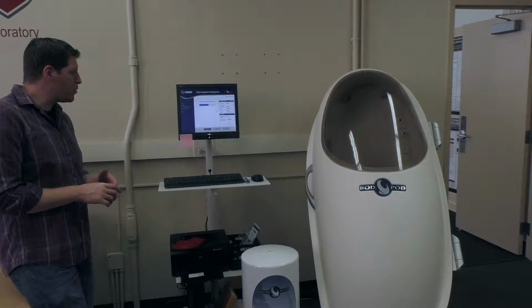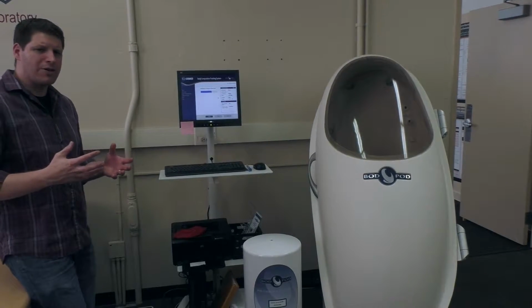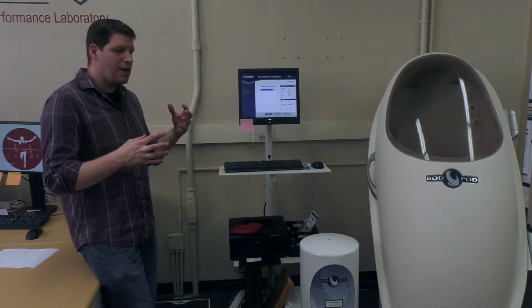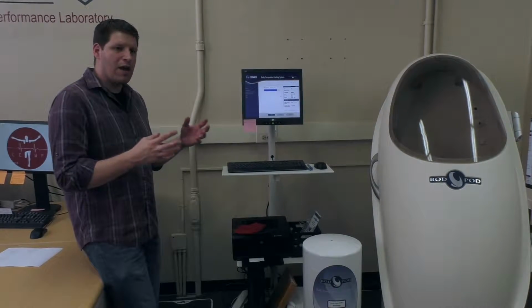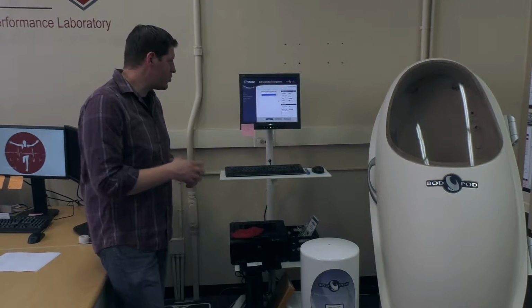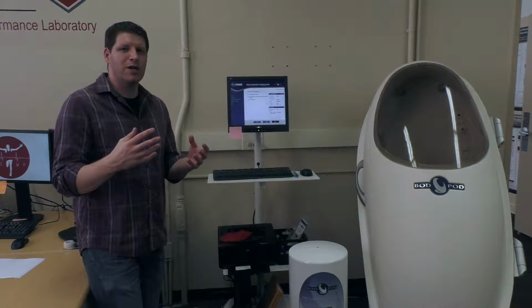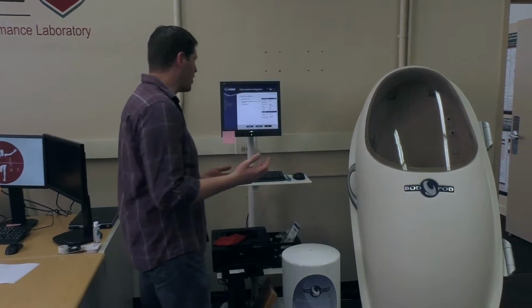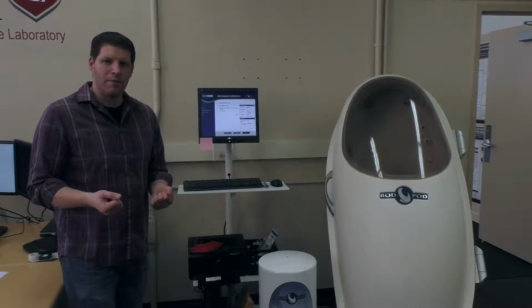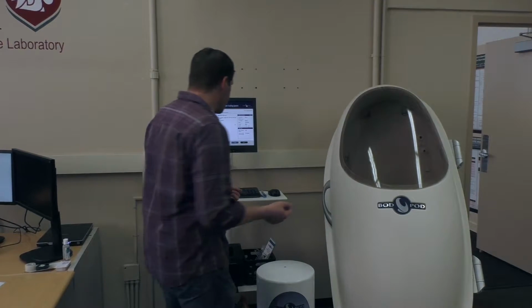And by the way, when the participant's actually in the BOD POD, they can't hear much. They can hear a little bit, but some of the sounds are amplified. Some of the air rushing in and out, some pops here and there as the seal shuts, for example. And they might feel some pressure on their ears, as if maybe taking off on an airplane. That can be a bit worrisome to a participant unless you tell them beforehand. Once you tell them, it's really not an issue, but if you don't, they'll be concerned.